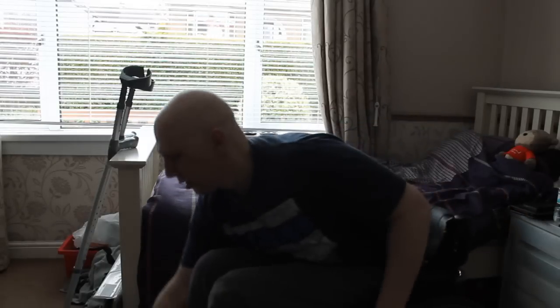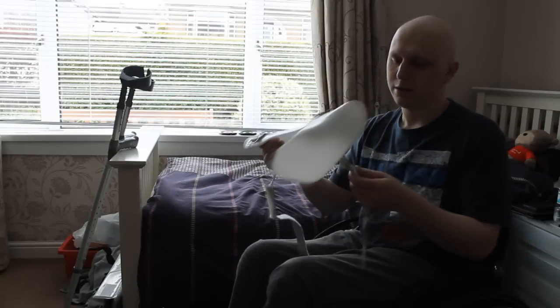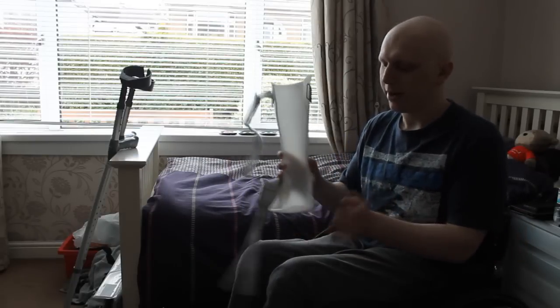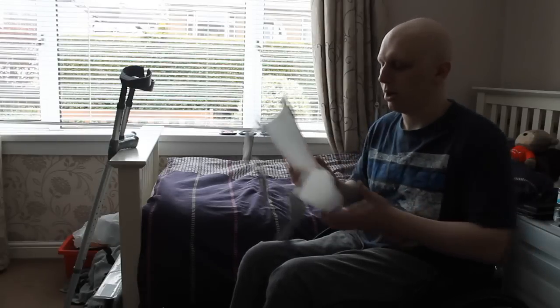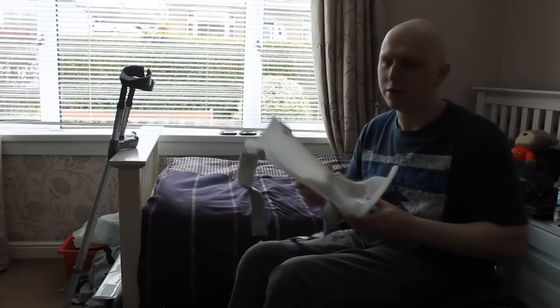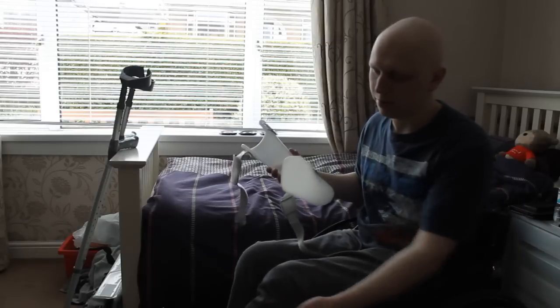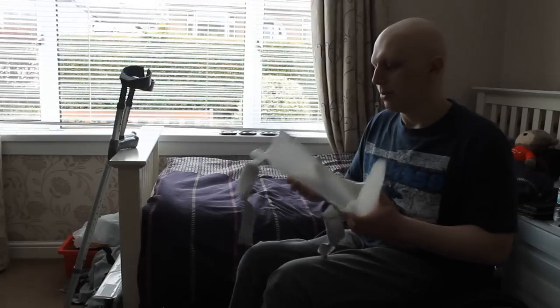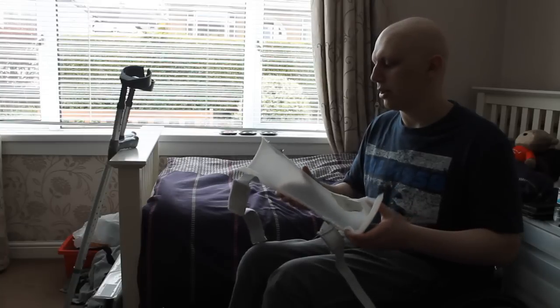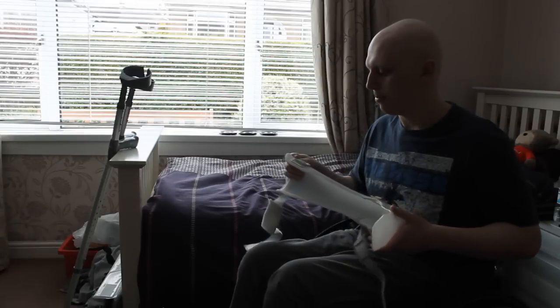The braces I use are these — these are AFO splints. They support my ankle and my foot because my feet don't have much control. If you've seen my other walking videos you might be able to notice I'm wearing these. It's kind of hard to notice when you're wearing them unless you actually feel down there for the hard splint on the leg. They're really beneficial for walking and I've had these since I started to progress to walk again.